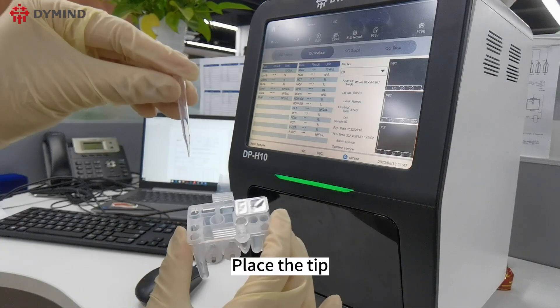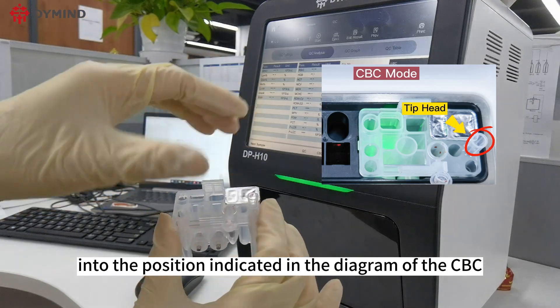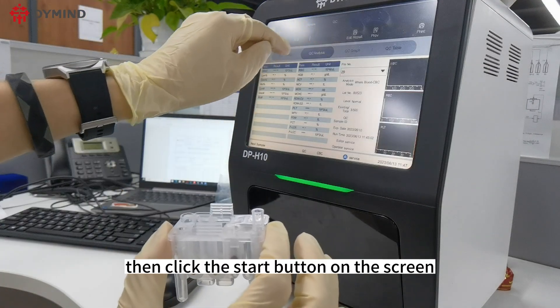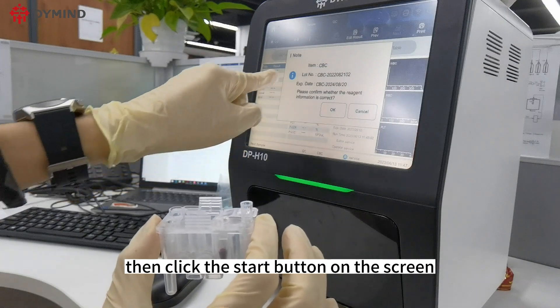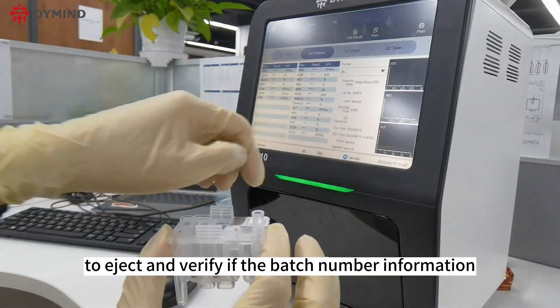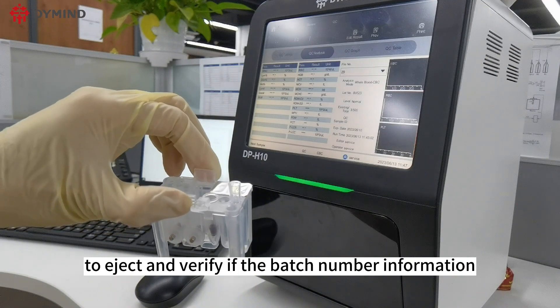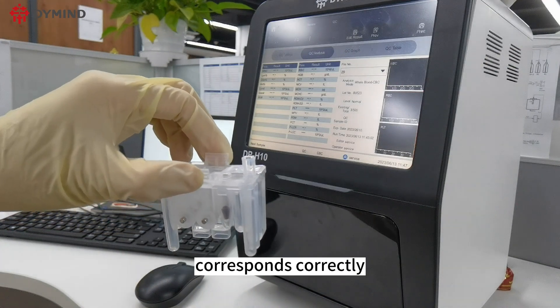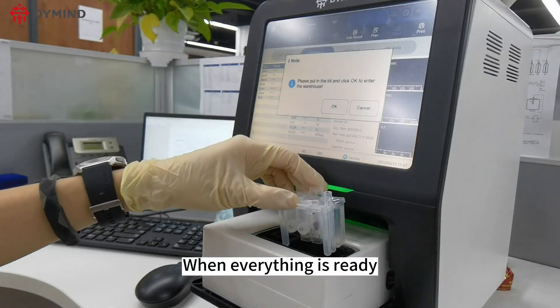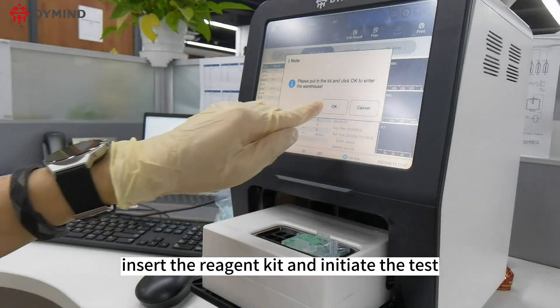Place the tip into the position indicated in the diagram of the device. Then click the Start button on the screen and wait for the detection box to eject. Verify that the batch number information corresponds correctly, and when everything is ready, insert the reagent kit and initiate the test.